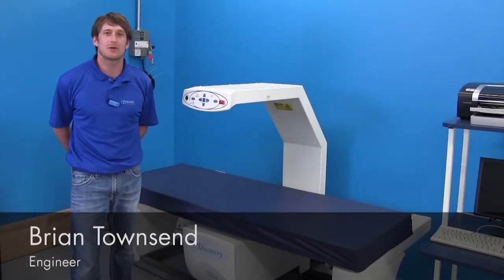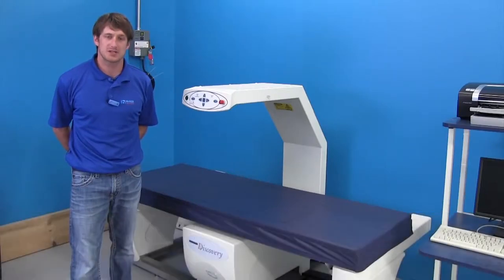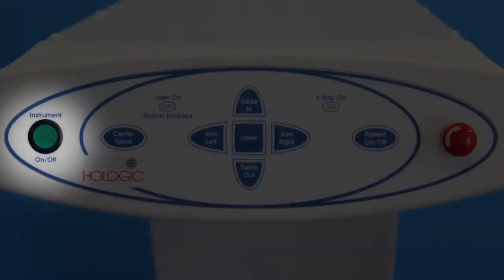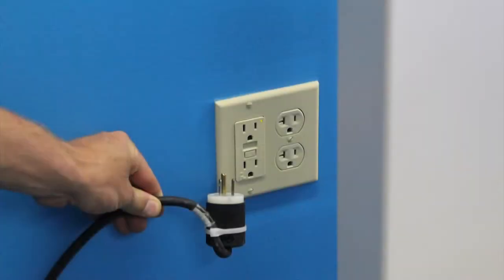Hi, today I'm here to show you how to safely remove your high voltage tank from your Hologic system. One of the first things you want to do is ensure that the software is off and that you removed all power from the system, and also unplug the system from the wall itself to eliminate all voltage possible.